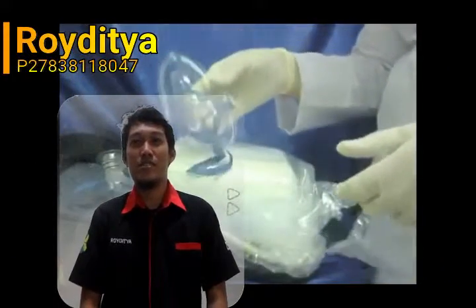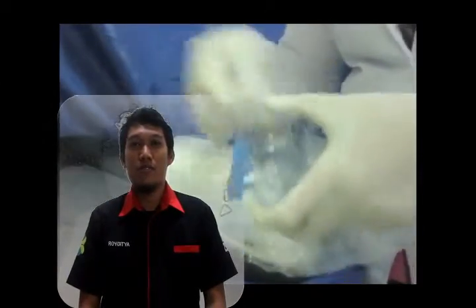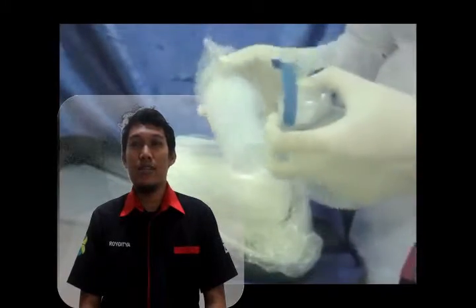Okay, thank you Mr. Rizky, Mr. Ilham. My name is Raditya. I want to explain nebulizer maintenance.